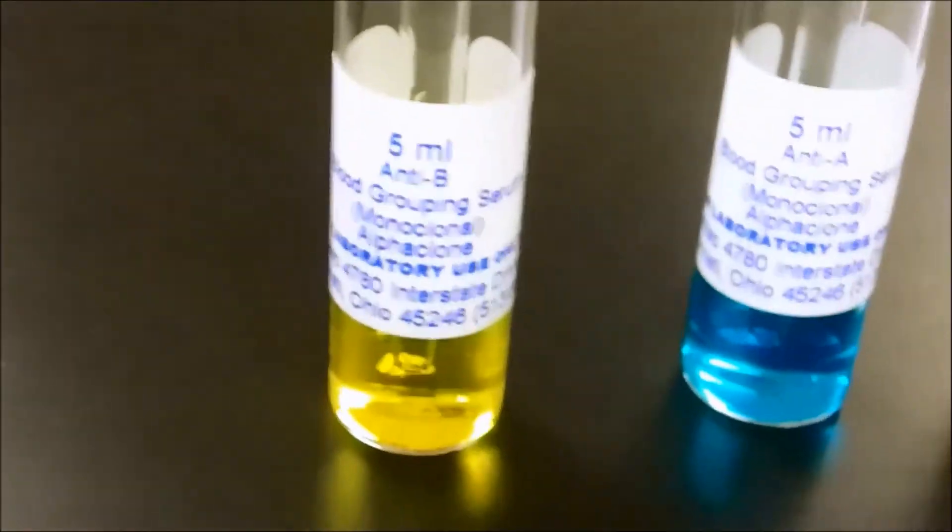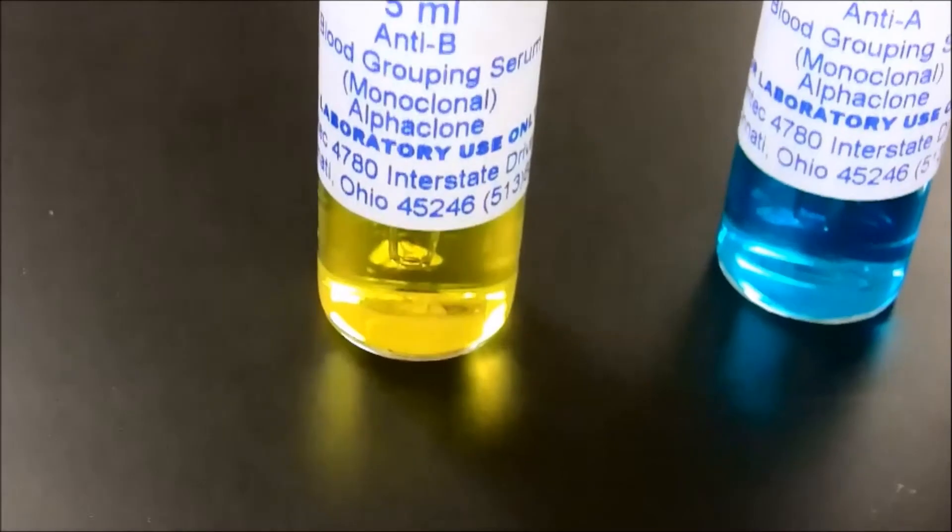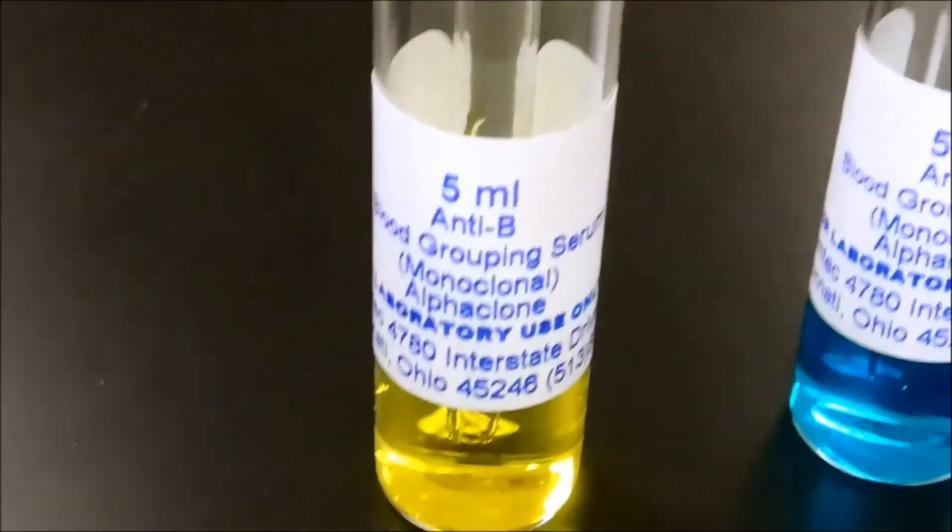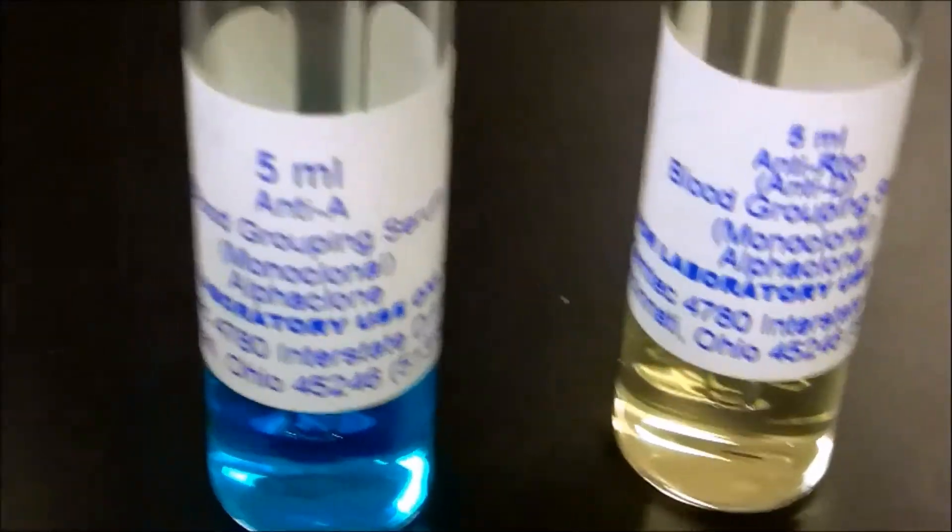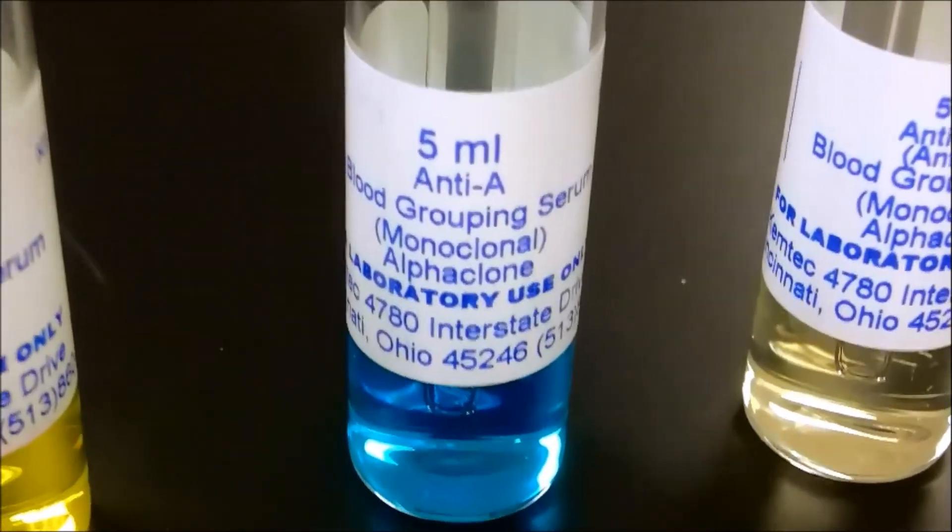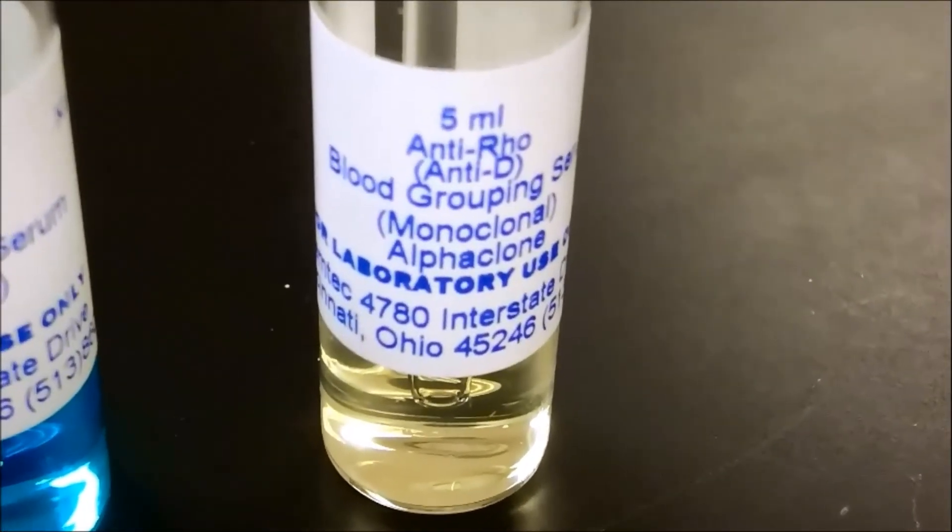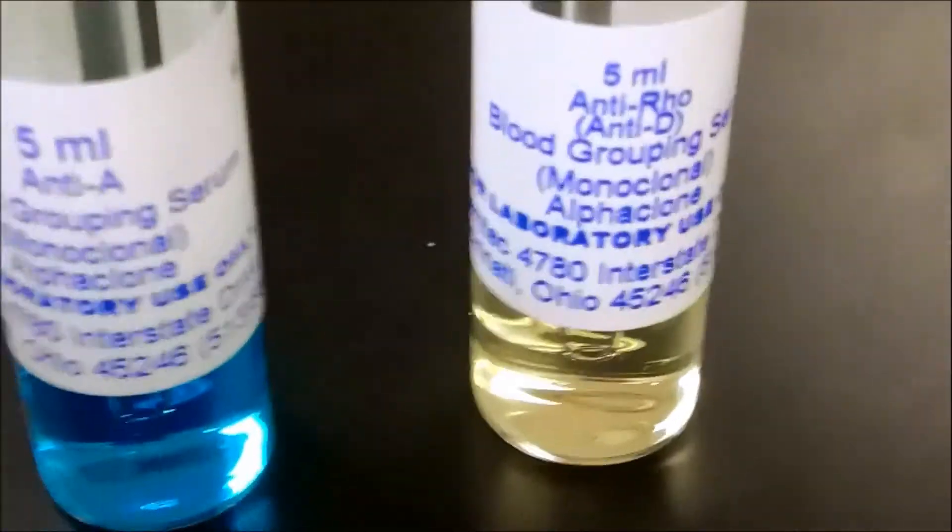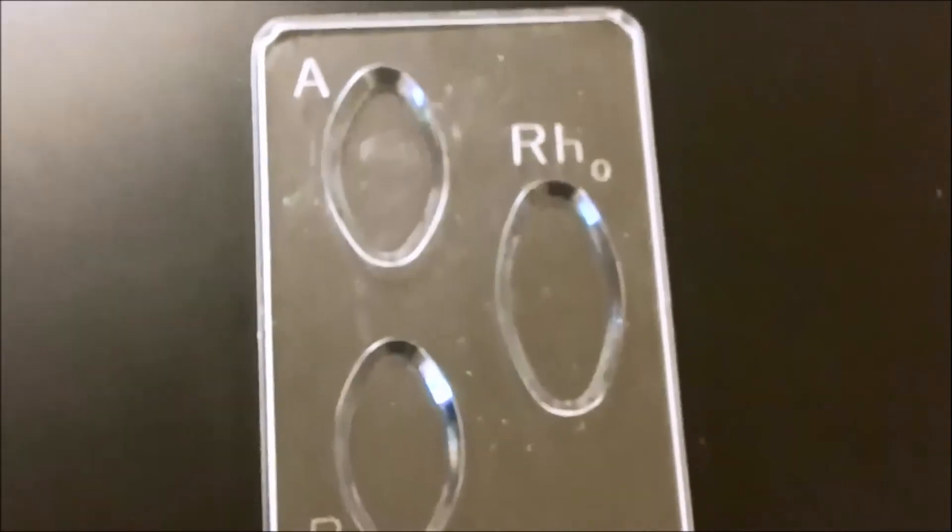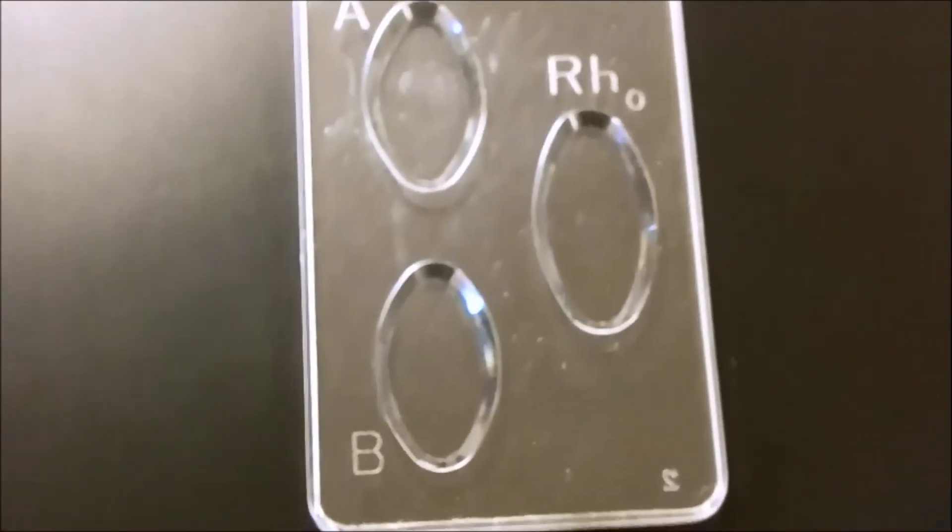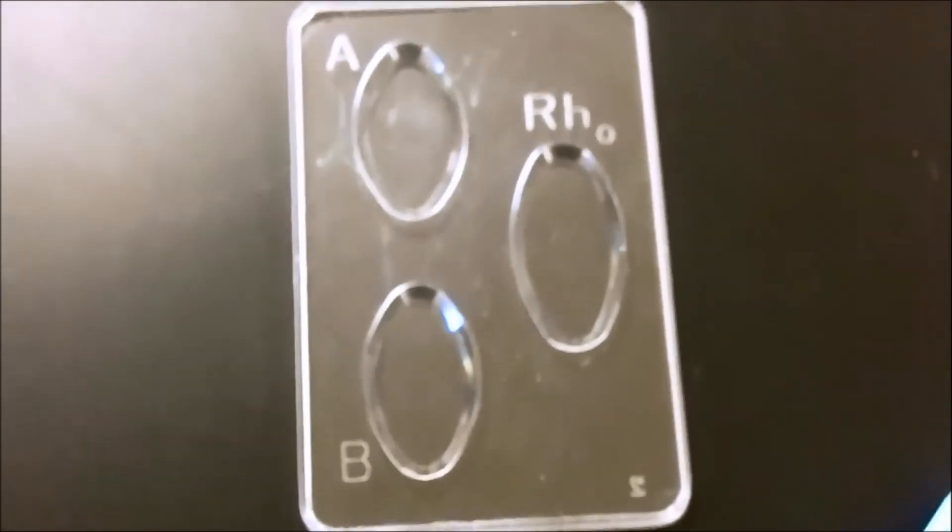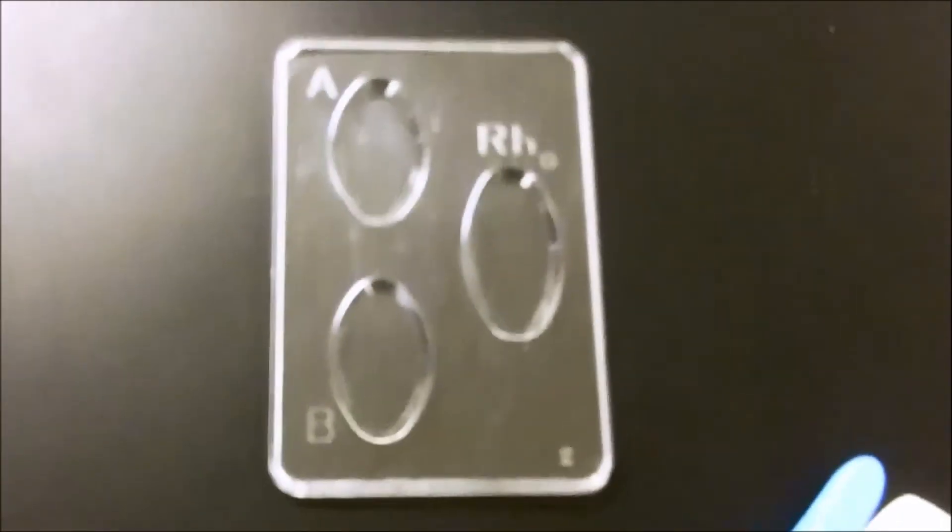This is the real thing, and here we have the real human serum. Yellow is anti-B, so that's B antigens. A is anti-A, A antigen, the protein that's on your blood cell, and the clear one is RH antibody, antigen, I'm sorry. The antibodies are in your blood, and that's what you want to look at for. So this is the tray, and you can do this with glass slides. You don't have to do it with trays, but this is A, B, and RH labeled to keep it straight.